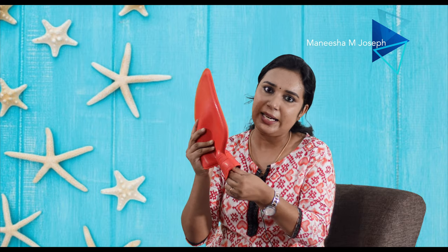This bag is guaranteed quality rubber. To use it, open the cap and fill it — you can pour water in. Fill it to about 3/4 of the bag. Then seal the cap tightly. Pre-check by pressing the bag to make sure there's no leak underneath the seal. Even if there is no leak detected, we still recommend checking carefully before applying it to the body.